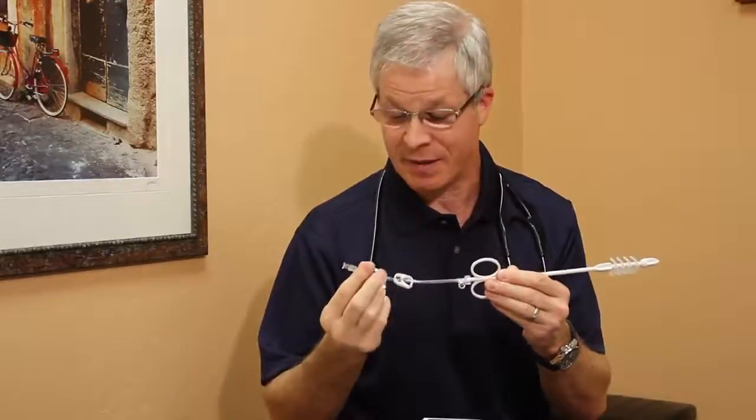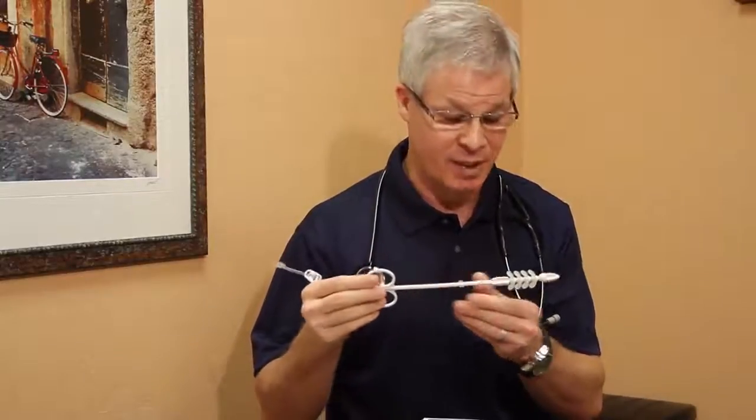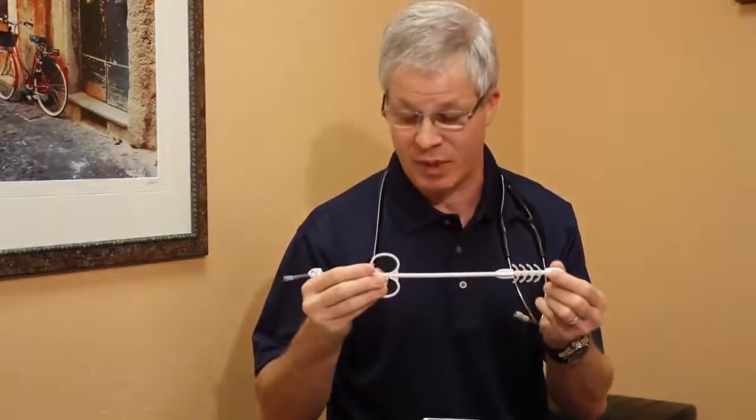Beyond that, you'll see that there is a luer lock adapter tip, and that communicates with the hollow channel of the device itself. The purpose of that is to be connected to extension tubing, and that's provided with each DisImpactor as well. The extension tubing simply couples to the luer adapter and then allows you to connect a standard syringe through which you'll be able to instill the enema fluid that will eventually exit through these ports. So what you'll notice by just looking at the device is that it answers a lot of the clinical problems that we had posed with traditional digital disimpaction.